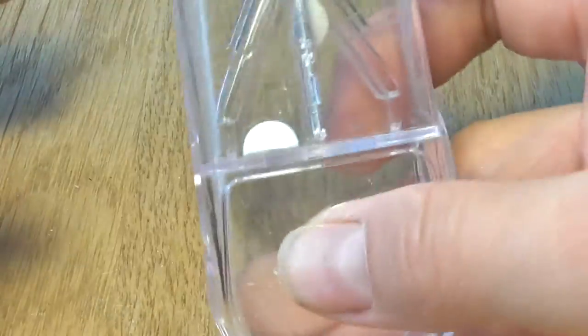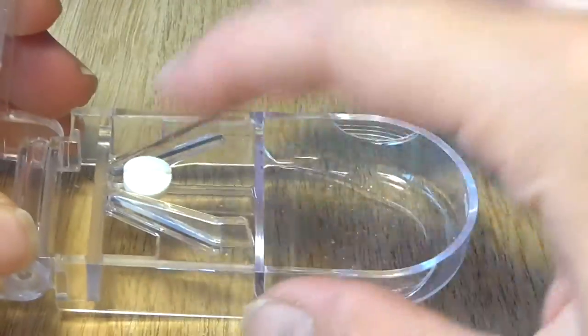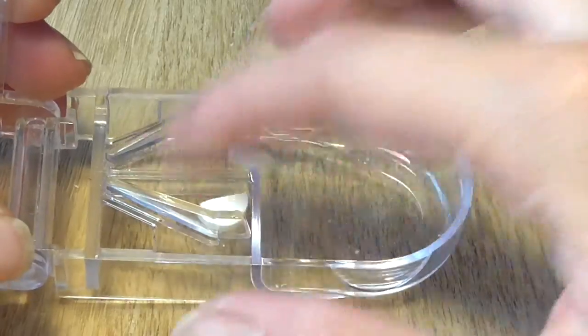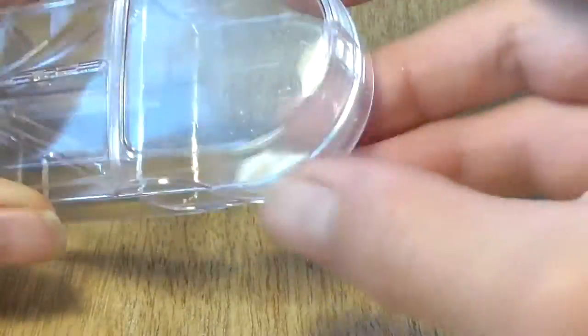Nice! It won't slide off and cuts it in the middle perfectly. This is a smoother cut. But is it strong enough to slice larger pills?